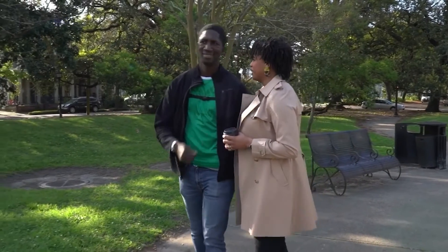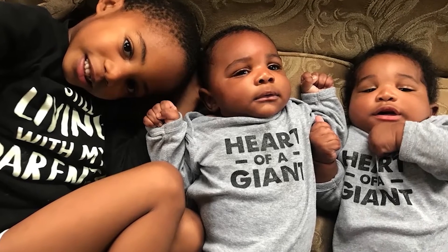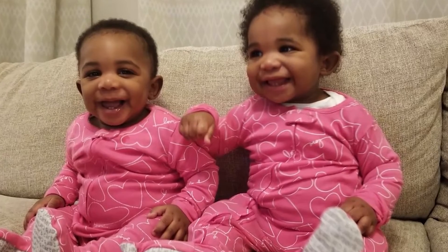I just felt strong and I felt good. The main difference, I think, was that the energy level wasn't spiking anymore. The LVAD allowed me to have this stable amount of power, which got better and better. As a mom of three young boys, I want him to be here as long as possible. And so, in a lot of ways, I see the HeartMate 3 and the LVAD as giving us more time.